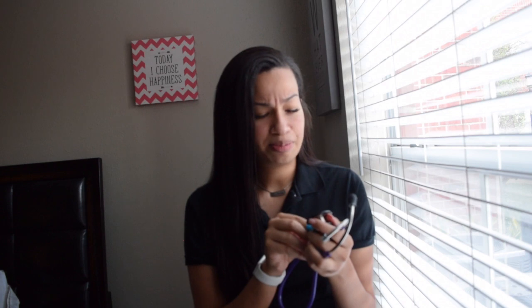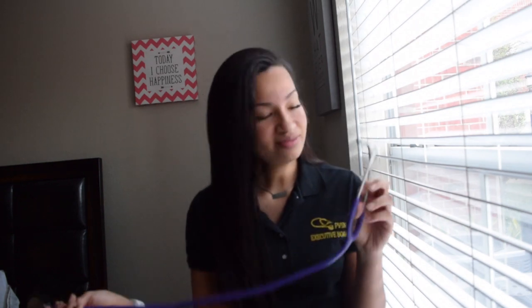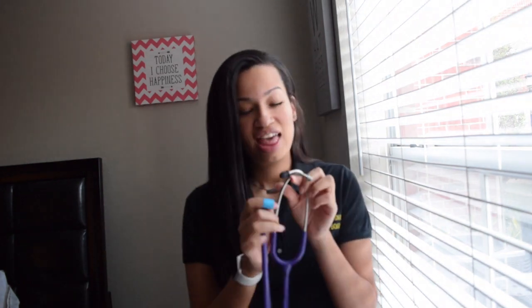The brand of this is Prestige Medical. First of all, let's look at the fact that one of my earpieces is missing. I was driving one day after my clinical and I looked down at my stethoscope and realized one of my earpieces was missing. At that point I knew it was time to get a new stethoscope. I wasn't too fond of this one because I just felt like I couldn't hear anything. It wasn't accurate. I just felt like it wasn't the best.